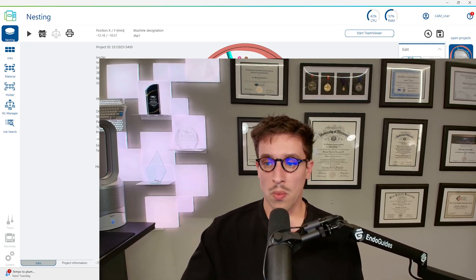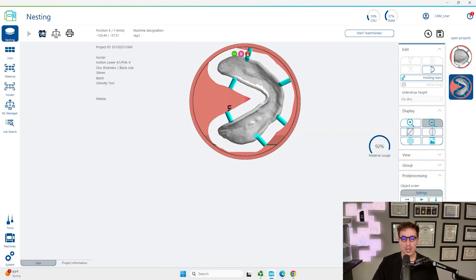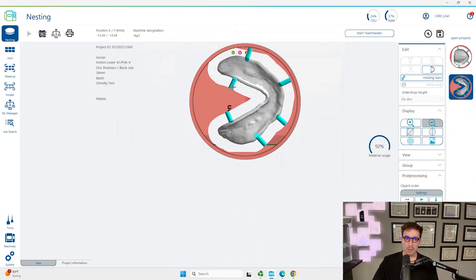Now that these all went through, the PM7 is a CNC machine. What a CNC machine basically does is you have a burr, so it's a subtractive manufacturing technique, not additive like a 3D printer, it's subtractive. Your computer is going to calculate all of the different paths for the different burrs that are going to be used throughout the entire milling process. You're going to see it's going to be hundreds of thousands of data points that it's calculating. Your computer calculates all of that and then it's going to send those written instructions to your milling unit, and then your milling unit is going to execute on those commands. After we calculate all of this, it takes a little while depending on the speed of your computer. One thing I found is that it's very dependent on your RAM capacity and RAM speed as well.